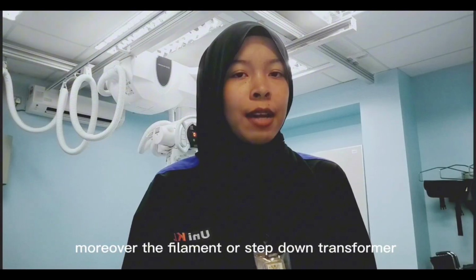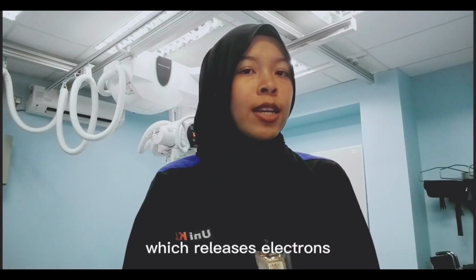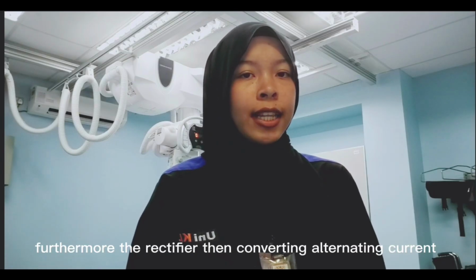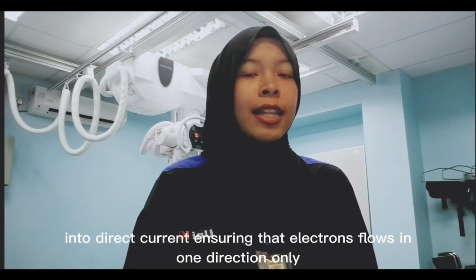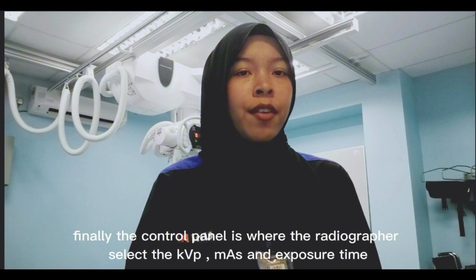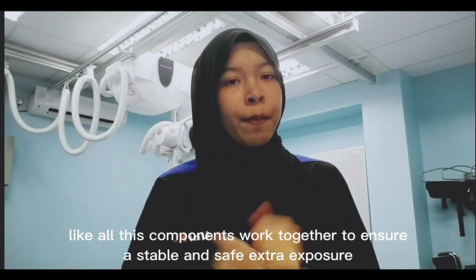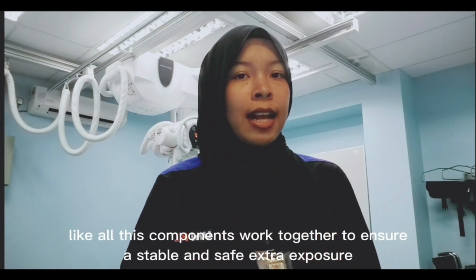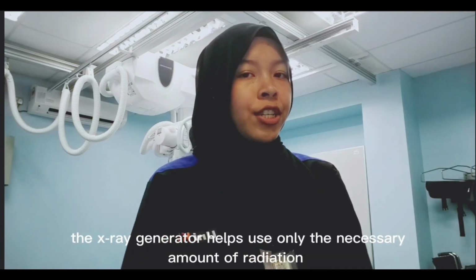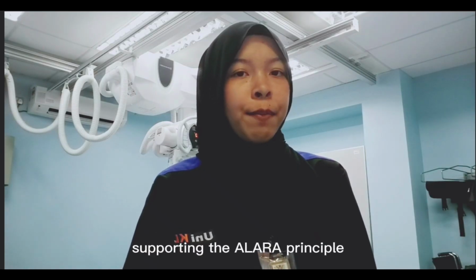Moreover, the filament or step-down transformer supplies low voltage and high current to heat the filament, which releases electrons. Furthermore, the rectifier converts alternating current into direct current, ensuring that electrons flow in one direction only. Finally, the control panel is where the radiographer selects the kVp, mAs, and exposure time. All these components work together to ensure a stable and safe X-ray exposure. By accurately controlling exposure factors, the X-ray generator helps use only the necessary amount of radiation, supporting the ALARA principle.